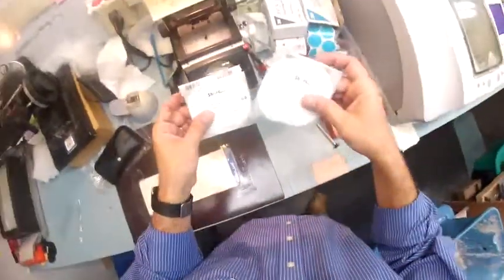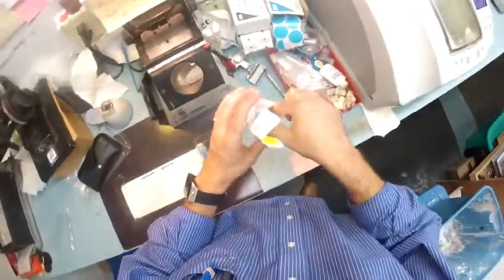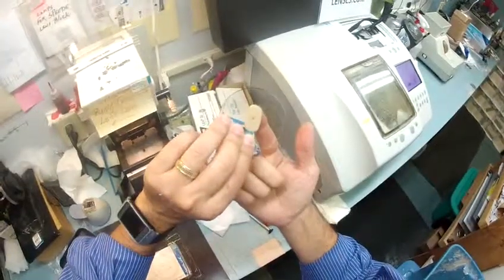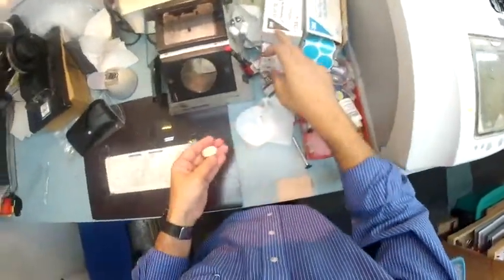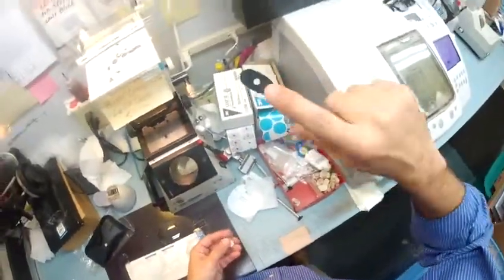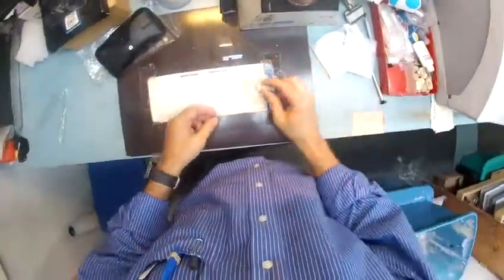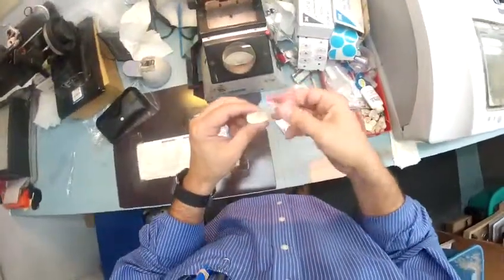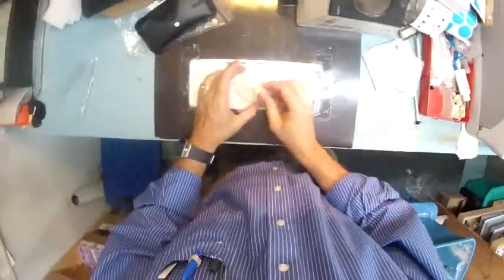So these are your lenses. I'm going to take them out of the protective sleeves. Now, these are the blocks I'm going to need to stick onto the lens — that's what's going to hold it in place in the lathe while it's cutting. Believe it or not, 3M, the same people who make Post-it notes, make these double-sided stickers. The black side is the sticky side. I stick that on there, pull the tape away to make that side sticky, and stick that down onto the middle of your lens. I'll do the same thing for the other lens.